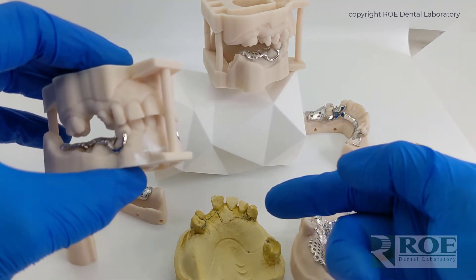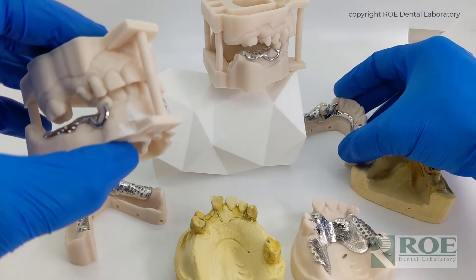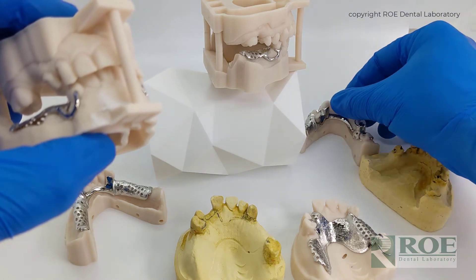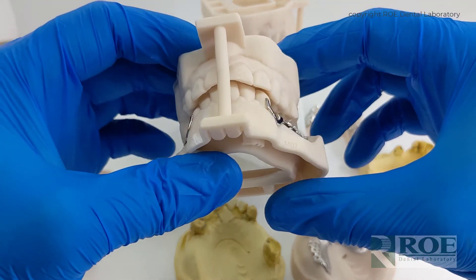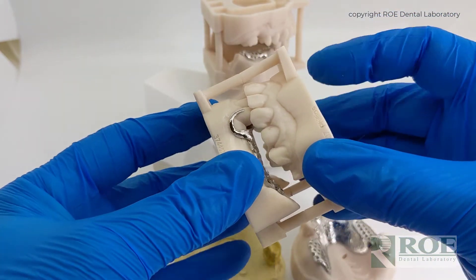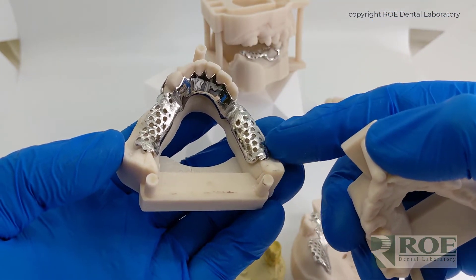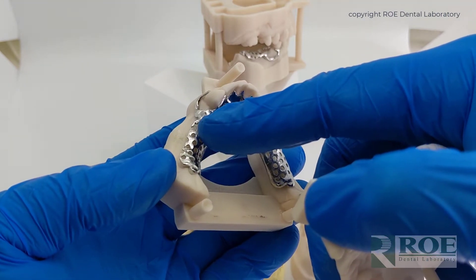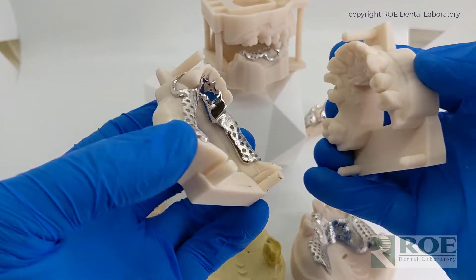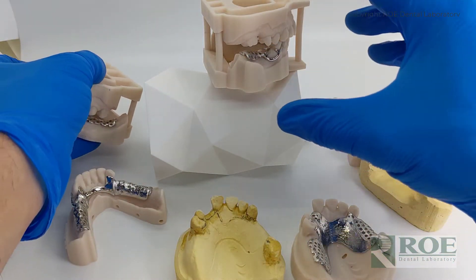Some doctors still send in conventional casts and we can make up a frame that fits very well in those situations. Some doctors also today have digital impression scanners. On those cases, as long as the doctor can capture the tissue area, the teeth area, and the tissue area perfectly, then we can also design a partial frame on these models.